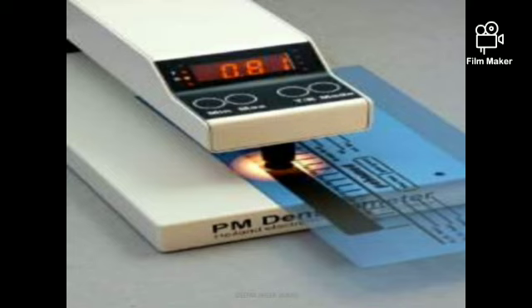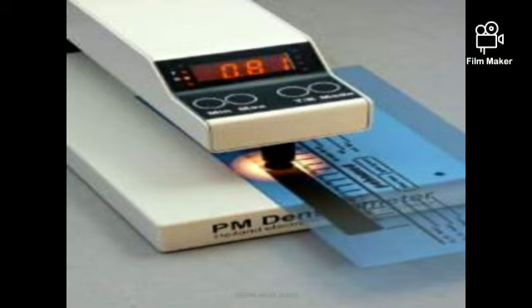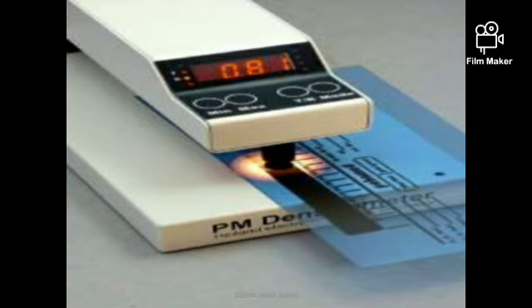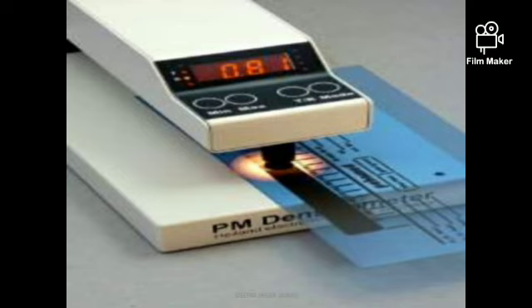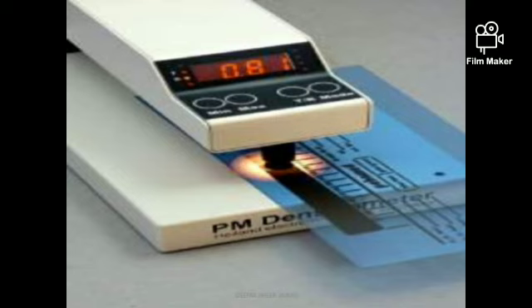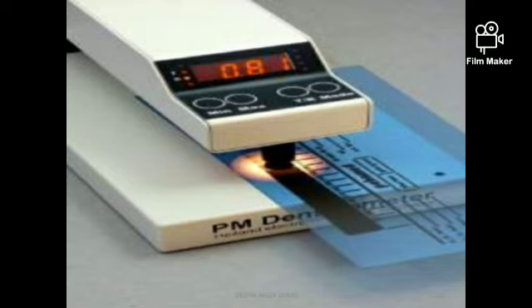We were discussing the various types of personal monitoring devices used in the radiation field. The first type was the film badge, which is a dosimeter device used to record the doses received by a radiographer. The film badge records doses based on density — the blacker the image, the higher the dose received by the individual.